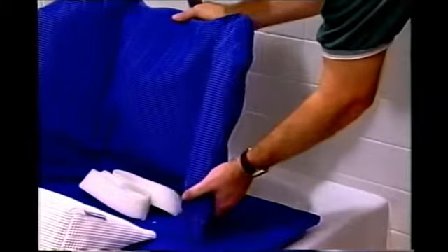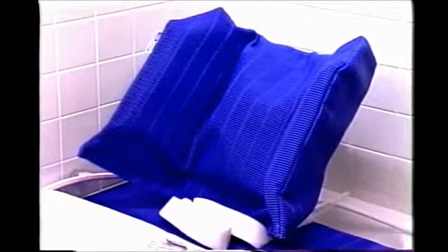The fixed special back has fully adjustable side flaps that lift and lock into position for lateral support. To accomplish a tilt-in-space position, a reclining special back is available with lateral support. It is reclined hydraulically by using the hand control, and the maximum angle is approximately 45 degrees.